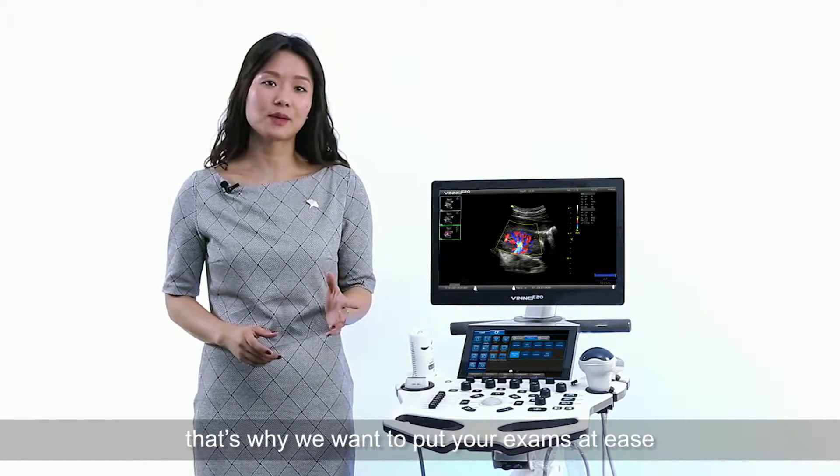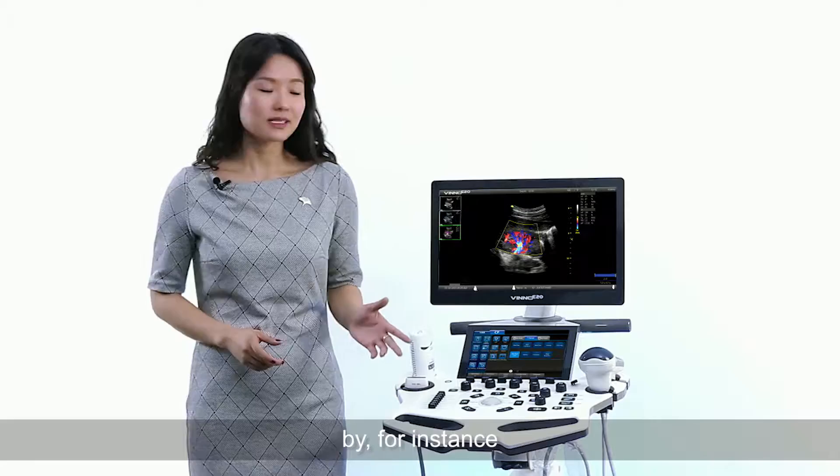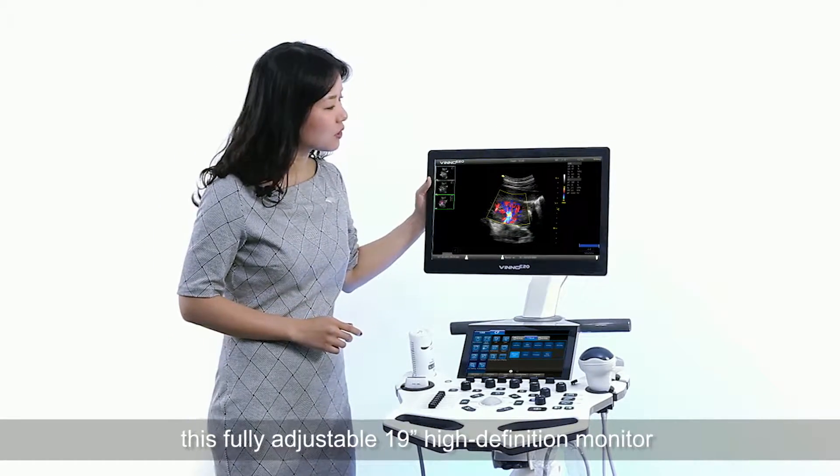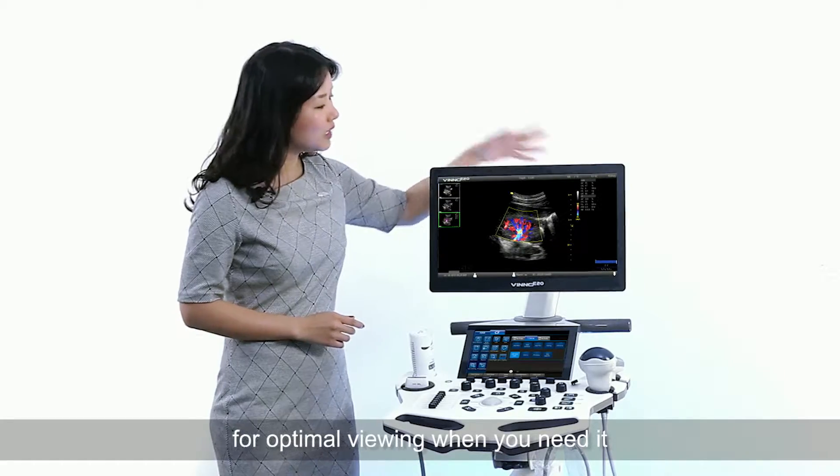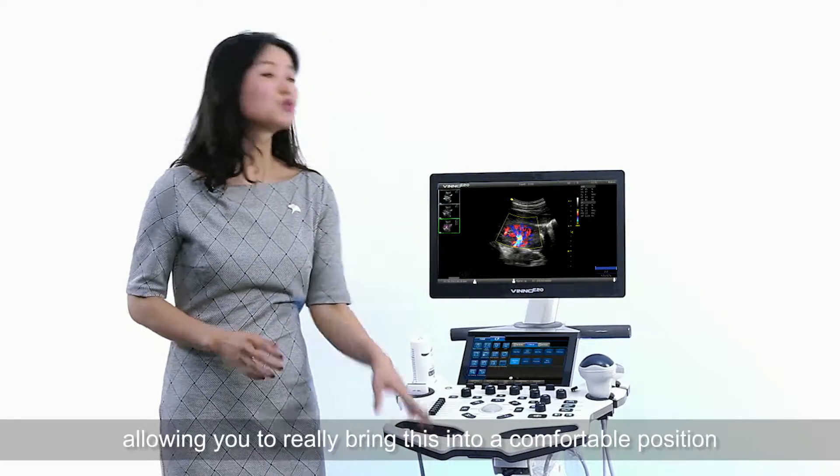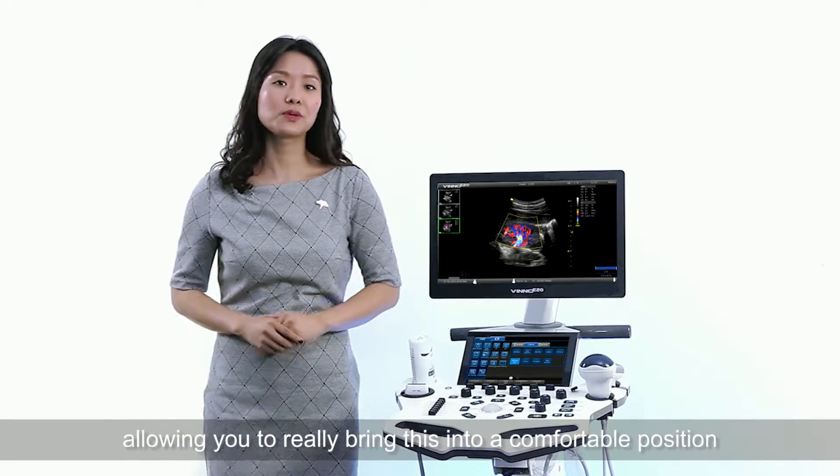That's why we want to put your exams at ease by, for instance, this fully adjustable 19-inch high-definition monitor for optimal view when you need it, and this height-adjustable console allowing you to really bring this into a comfortable position.